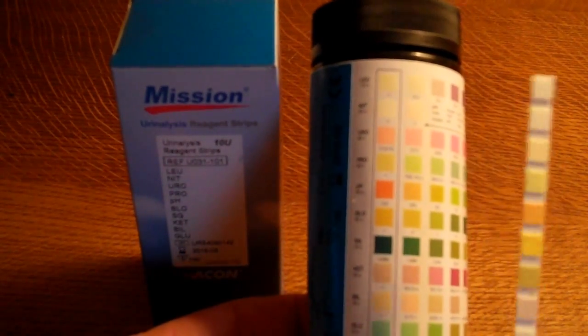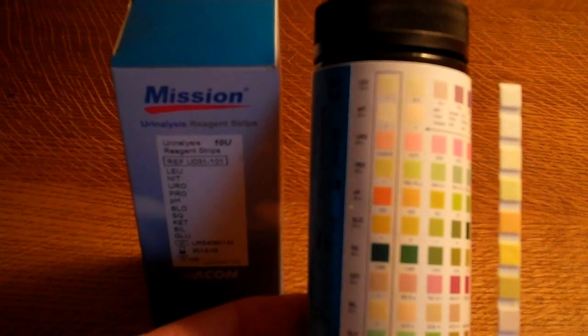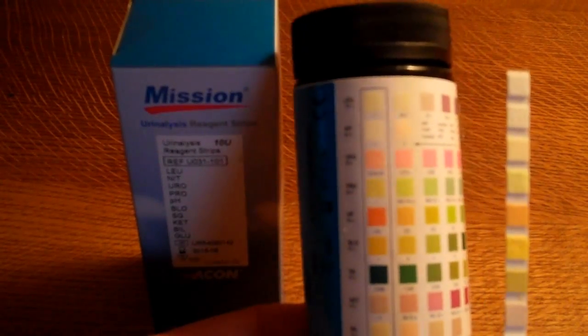Against that you will see marked on these results the basic detection levels - semi-quantitative - these are to give you an indication of the quantity of each of these parameters that's been detected in urine sample. So what I'm going to do now is just dip this in a negative, all negative sample, and then come and show you the results showing on the test strip at two minutes.